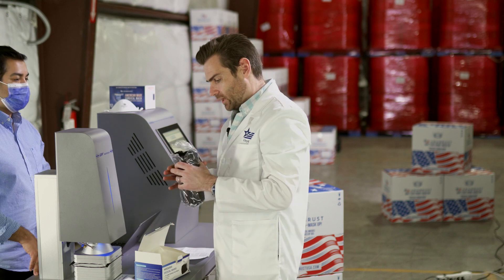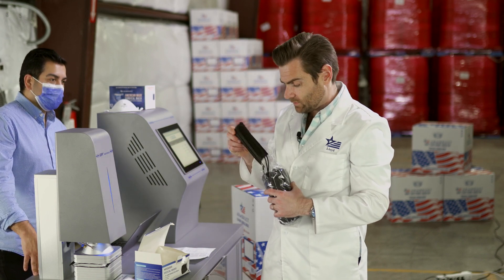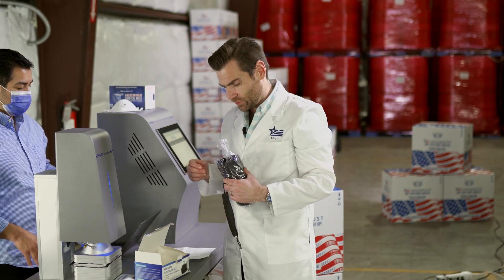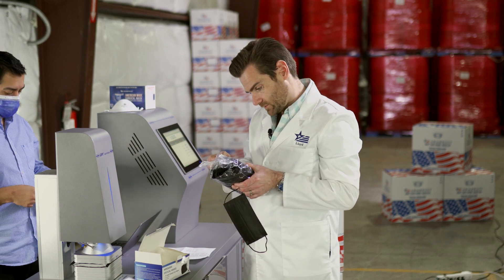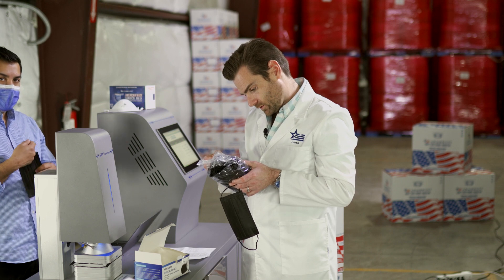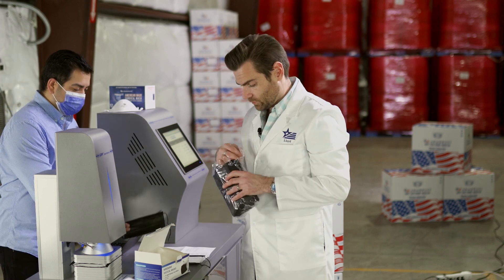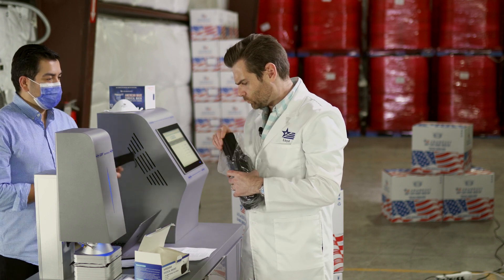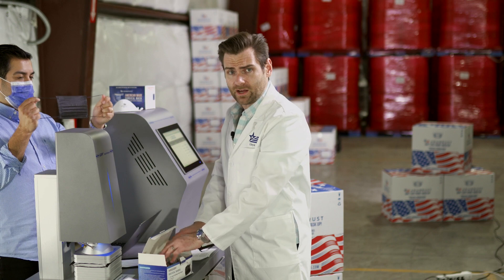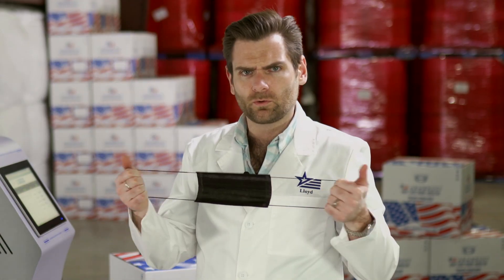Packaging is okay. It's sealed — that's nice. I like to see sealed packaging, but it's also using kind of a thinner material. These are Chinese masks. You have the quality certificate here. These are really thick. The airflow resistance is coming in at 105 Pascals, which is higher than we're seeing normally — that's actually pretty good.